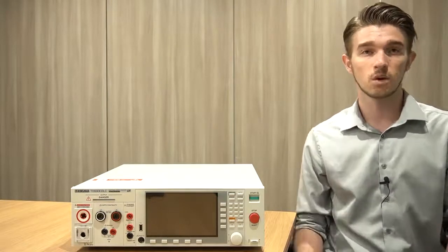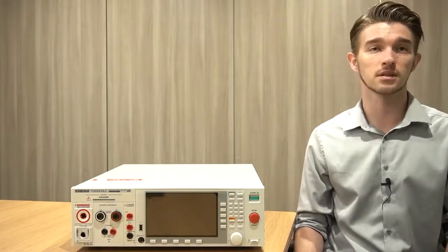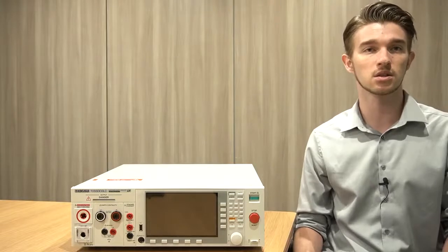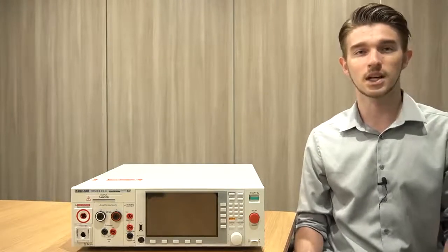limits respectively. Once this test has been completed, you can rest assured that your electromedical device is compliant to the latest patient leakage current standards and is deemed safe in a medical environment. And that's all for today's video.